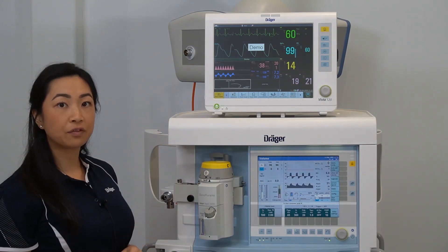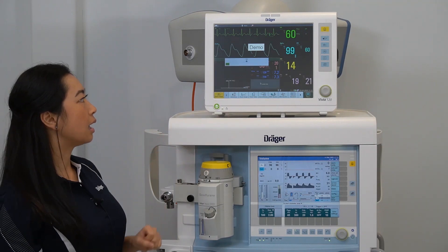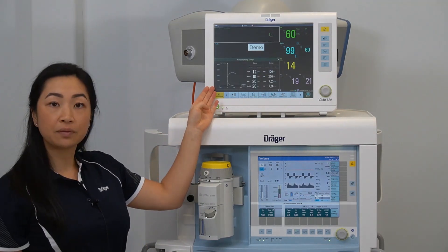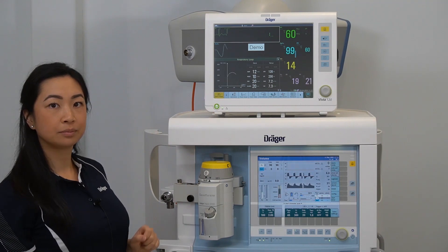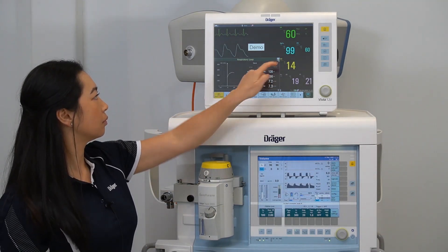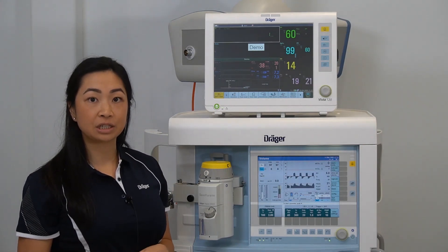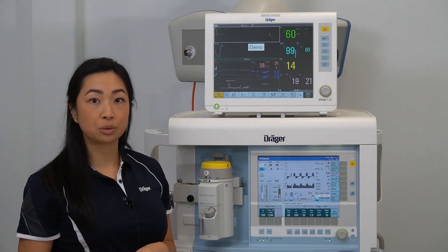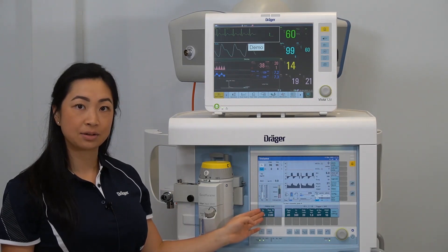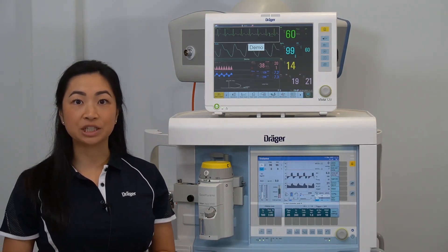To view further information on the loops, select 'Large Loop' — this will give you additional information. Keep in mind, if any ventilation alarms do appear, you will need to manage them from the Primus IE screen.